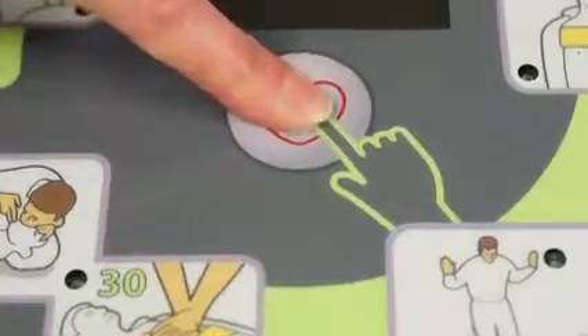Yet many people don't know this. Research shows that when an AED is attached to a victim of cardiac arrest, it will advise a shock only half the time. Once your AED says no shock advised, only CPR can save the victim. At that point, you have to ask: will my AED support my CPR by guiding my rate and depth?